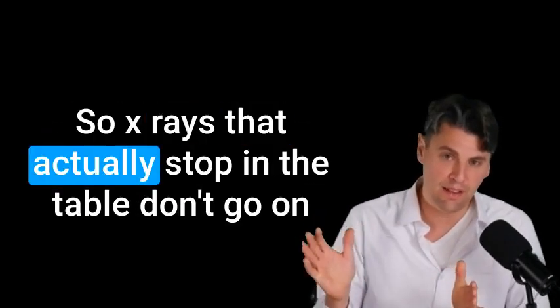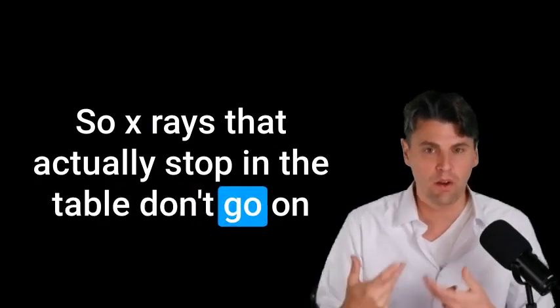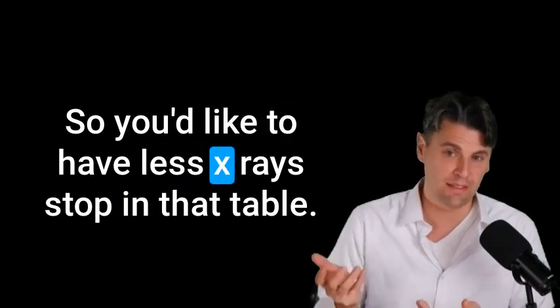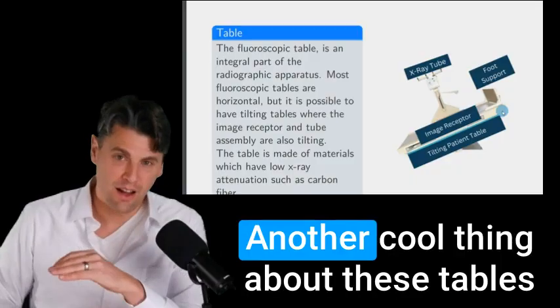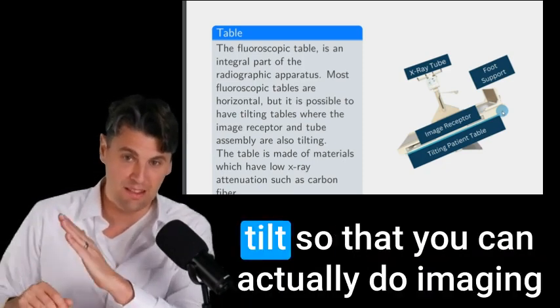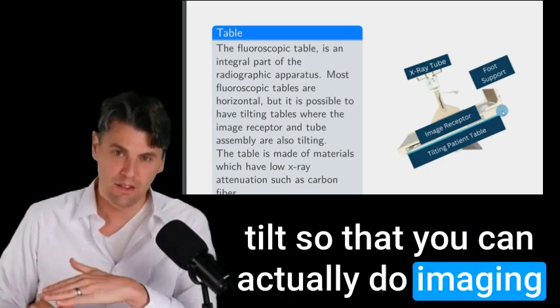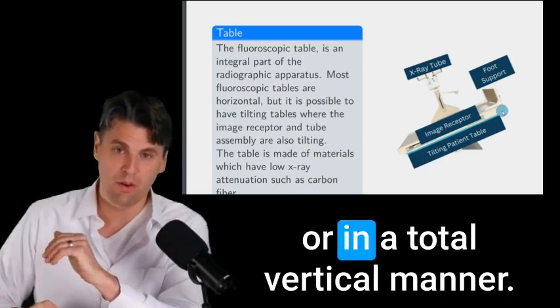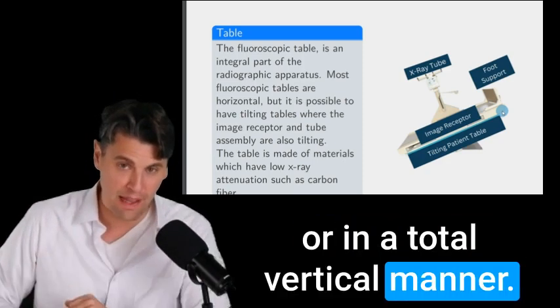So x-rays that actually stop in the table don't go on to contribute in a positive manner to the image. So you'd like to have less x-rays stop in that table. Another cool thing about these tables is some of the tables can actually tilt so that you can actually do imaging either horizontally in a slight tilt or in a total vertical manner.